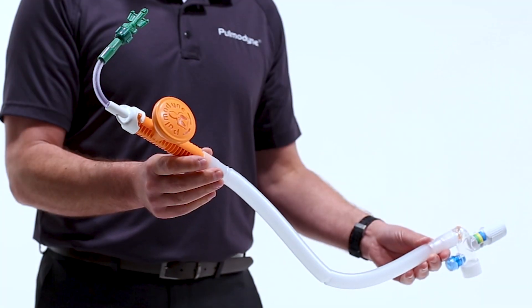As I stated, the elbow, hose, and generator are all pre-connected. When you want to start CPAP, you will need to attach the BiTrac ED mask. Our BiTrac full face ED mask made in the USA offers several advantages over the competition. First, everything is made of silicone, including the forehead piece. The competition's masks are at times made of foam, which can cause skin breakdown on the forehead. Ours is easy to wipe clean and adjust due to our unique Omni clip. It adjusts both up, down, and in and out. Our BiTrac full face ED mask also offers a floating dual lip style cushion, which allows the mask to float on the patient's face. Because the mask floats on the patient's face, it gives you many advantages over the competition. First being it helps prevent pressure ulcers from forming on the bridge of the nose, and it also prevents unwanted leak from happening.